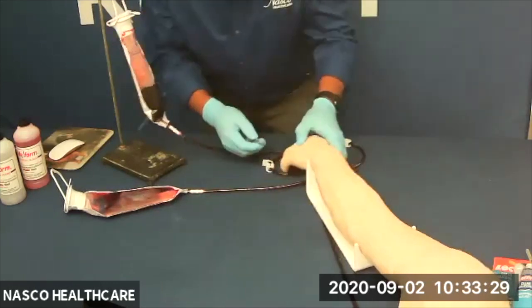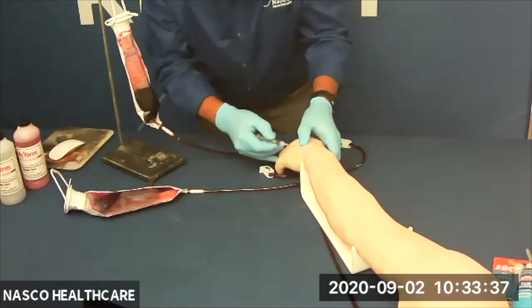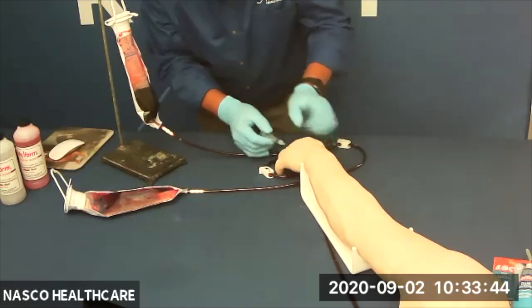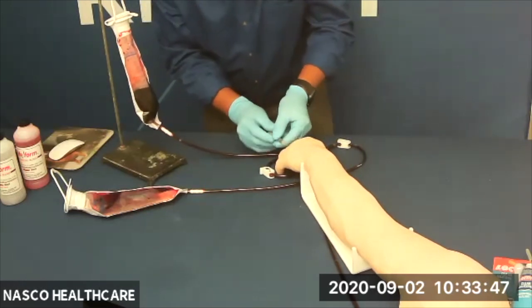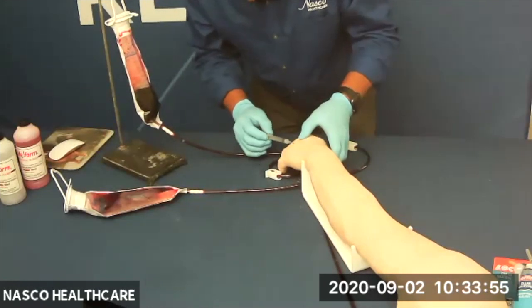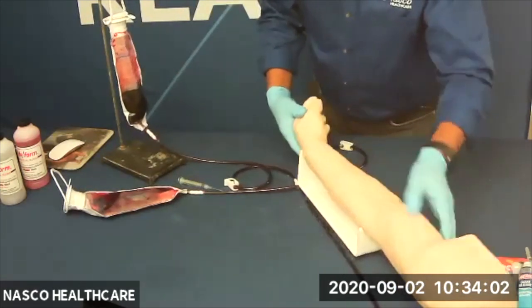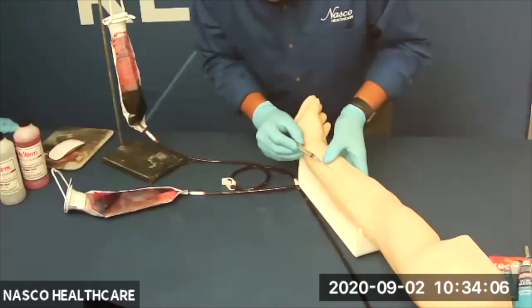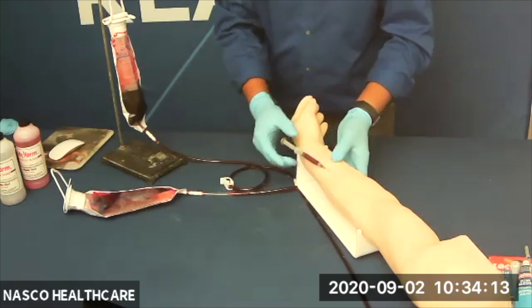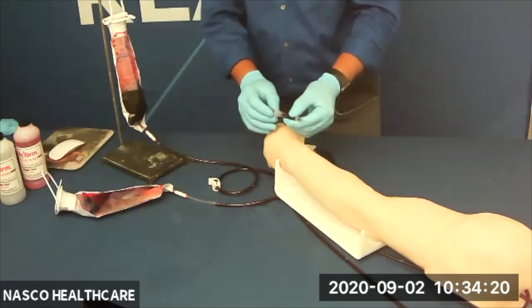When in doubt, just try again and work slowly. The purpose of the arm is to practice and to get used to the locations of the veins — just like in a real setting. You will want to use distilled water when prepping the injection site and for the injection. So now we've successfully completed the procedure. It takes a few tries — it's a tricky one.